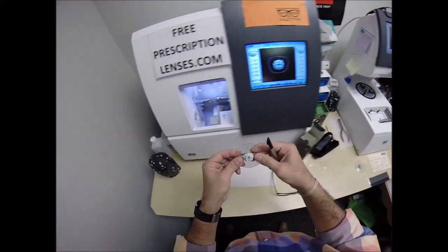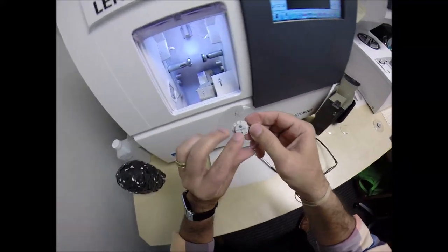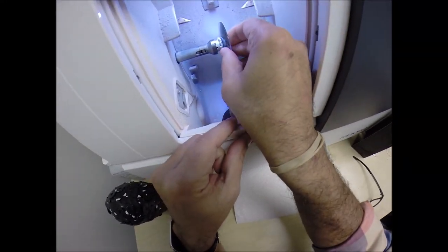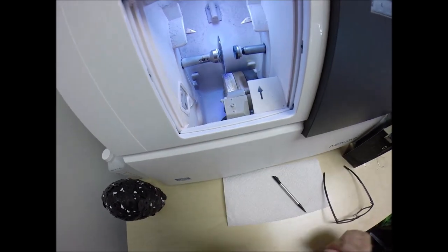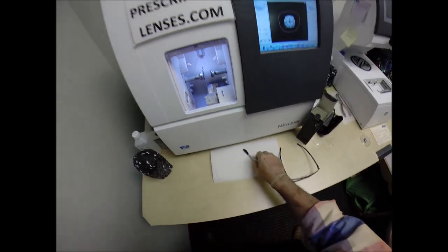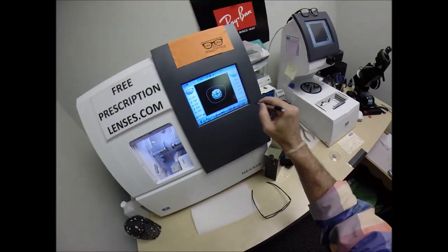Let's go ahead and press that on there. Now the magnet is going to do its job a second time. It's going to attach itself to another magnet there in the chuck. By now, you know I like to call it the Charles because I don't know this machine well enough to call it chuck. I'm telling you, buy your own. You won't have to listen to my bad jokes anymore.